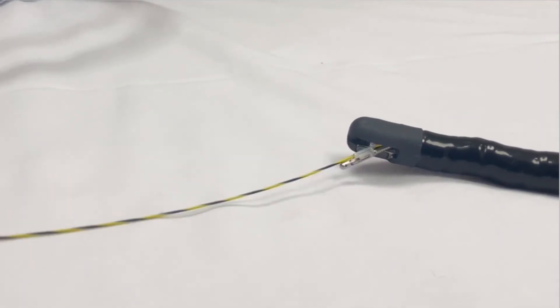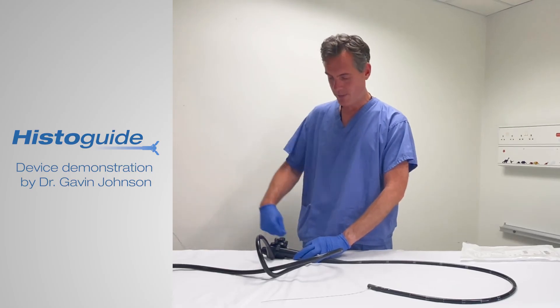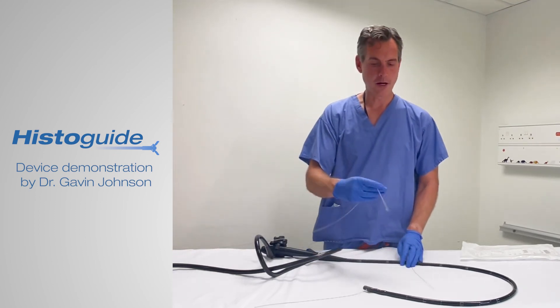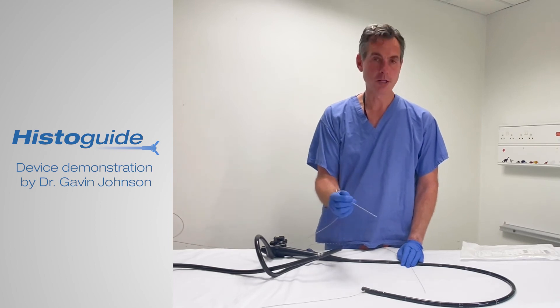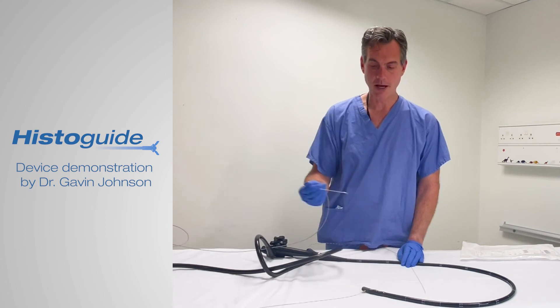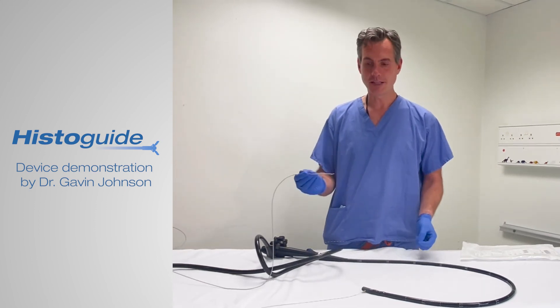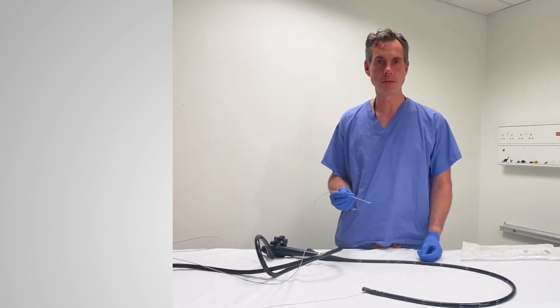We give a little pull and then it's just a standard exchange and away we go. It's a simple case of removing the forceps, opening that up over your standard histopathology pots, swirling it around, making sure there's no further sampling, rinsing that, and usually going again. The beauty of this is it's wire-guided, so you're not having to freehand cannulate time and again to get three or four specimens.